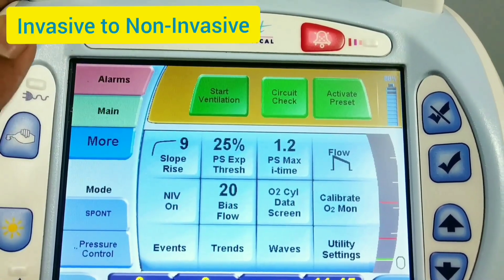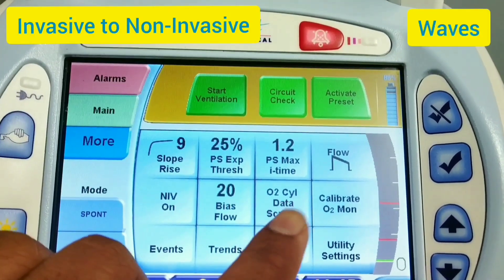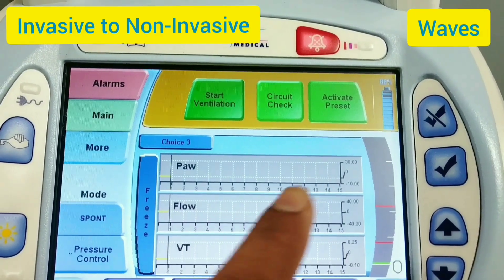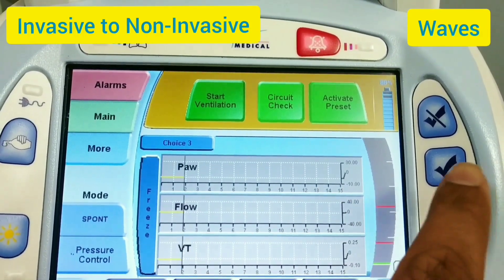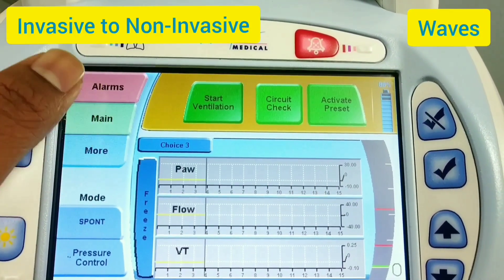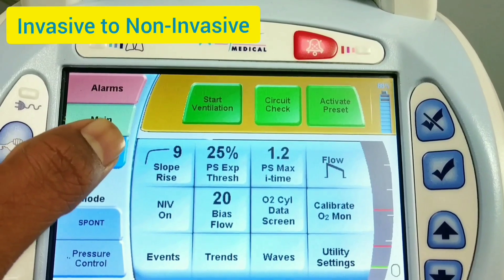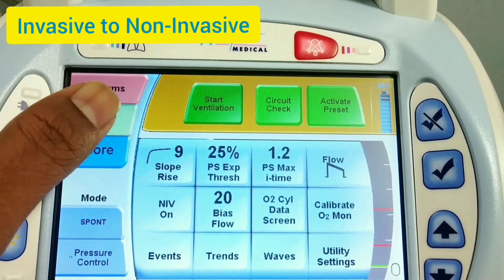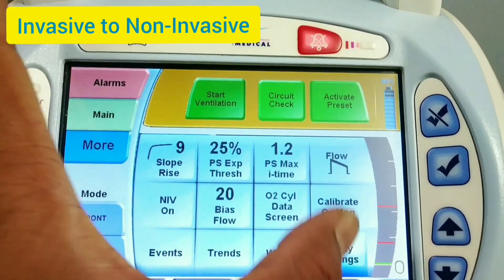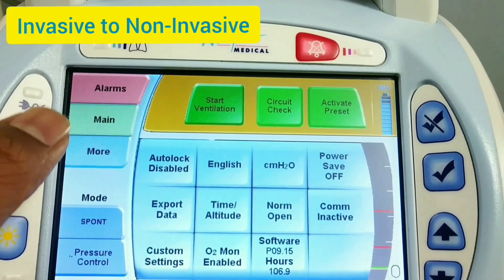There are these types of settings in the More menu. If you want to see the waveforms, you can see them here. Now let's see the utility settings — these are the utility settings.